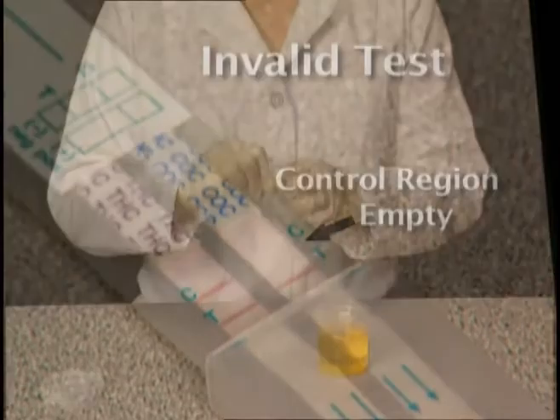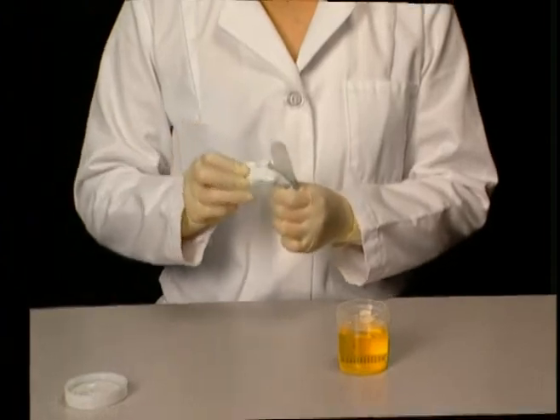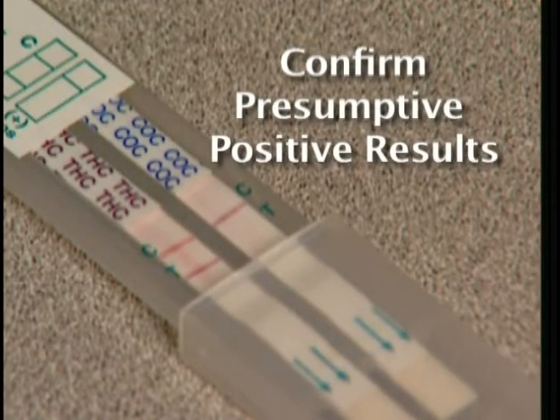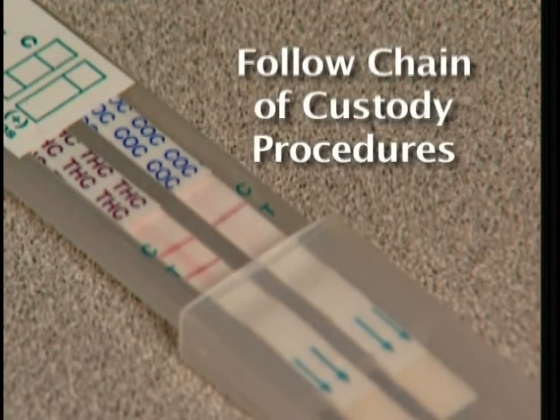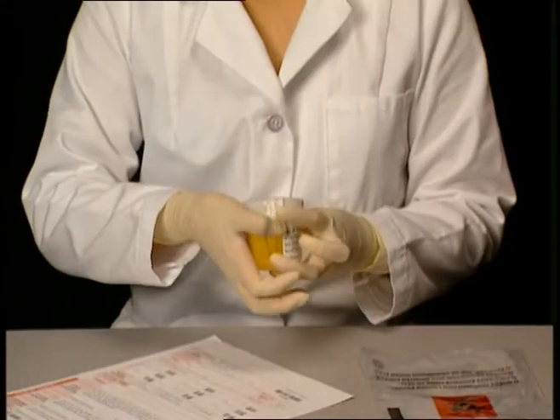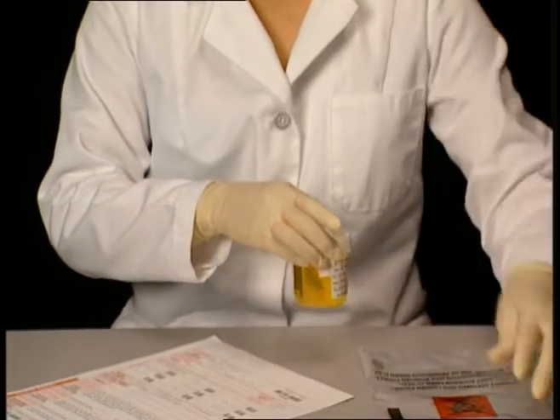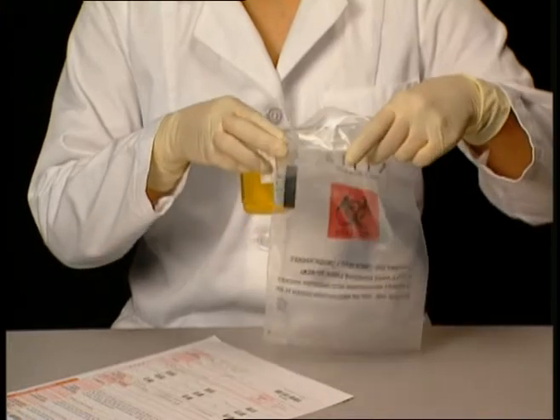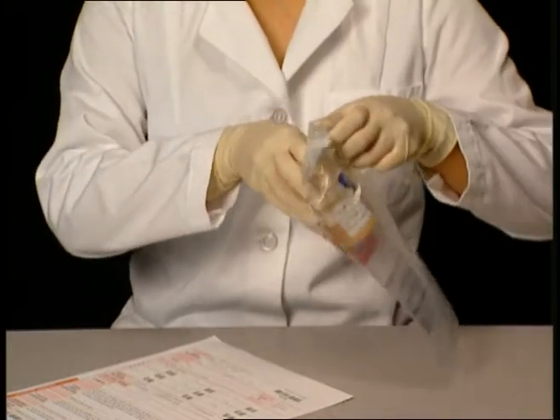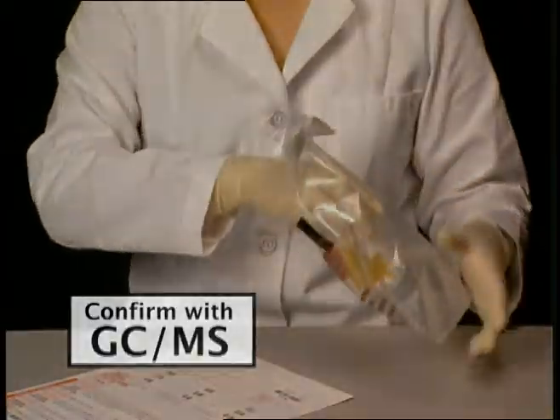In that event, repeat the test with a new device. If results are to be confirmed, follow the standard chain of custody procedures. We recommend that samples indicating a presumptive positive result be confirmed with a more specific quantitative method, gas chromatography mass spectrometry.